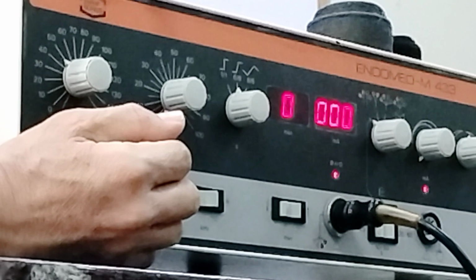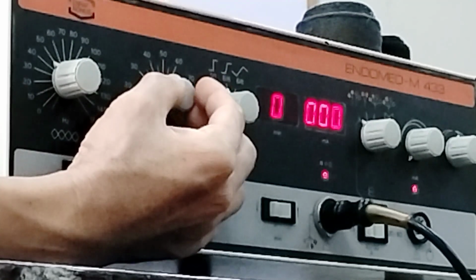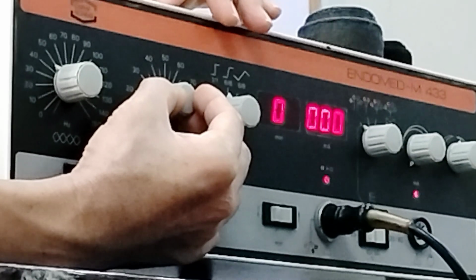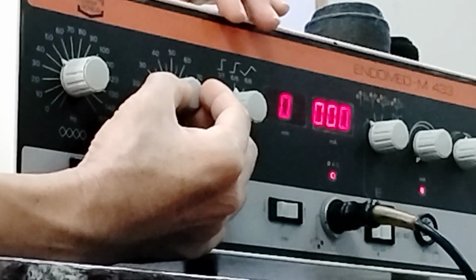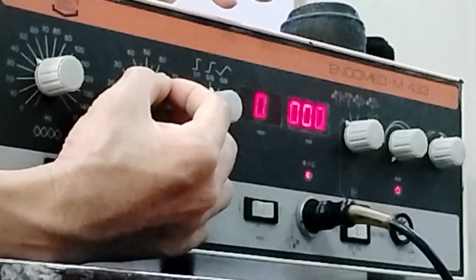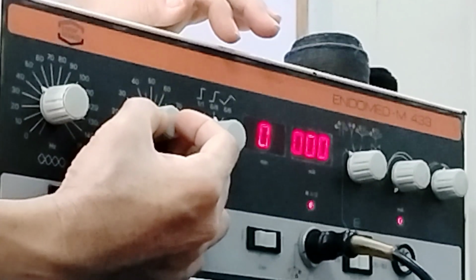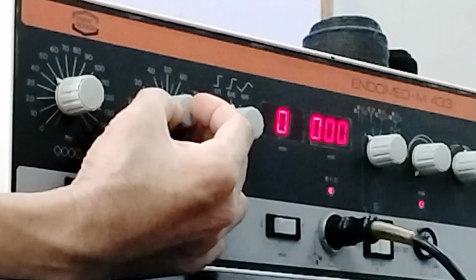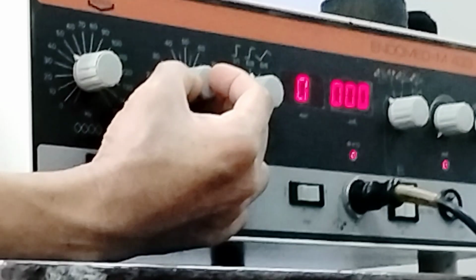But once you adjust your shift frequency or spectrum frequency, you expect that the frequency will now vary. Once you adjust this one, it adds to your frequency by the amount that it varies.